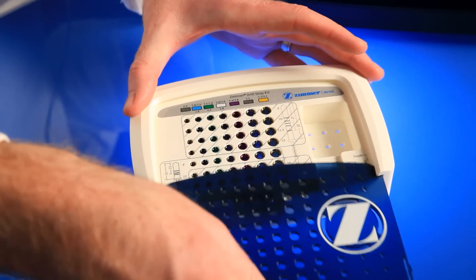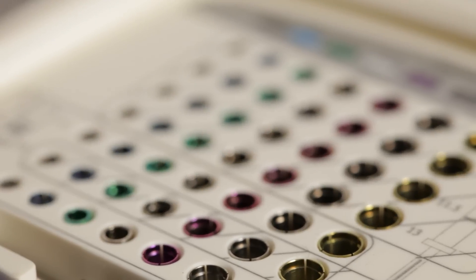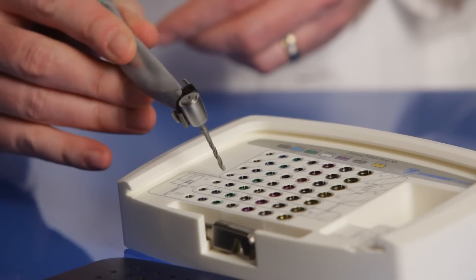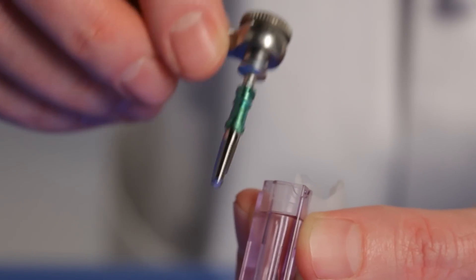Let me show you a great product that we've used for two years to control our depth when drilling. This is the Zimmer Drill Stop Kit. These well-designed sleeves fit over the drills and create a ledge that prevents drilling past the intended depth.